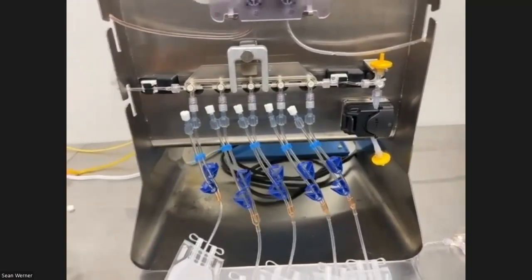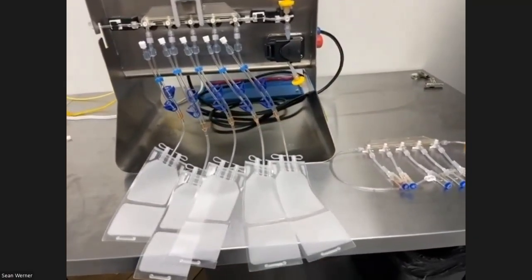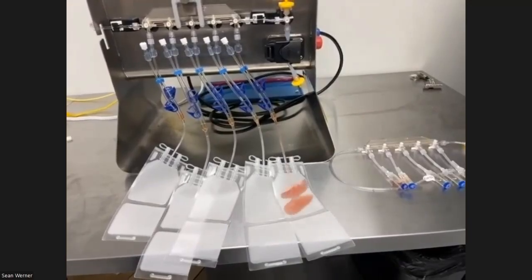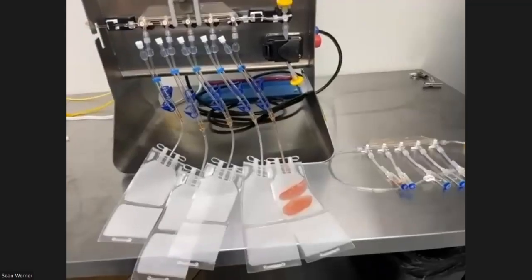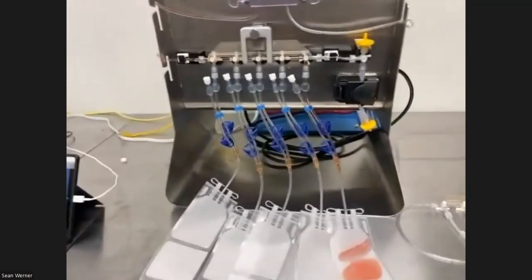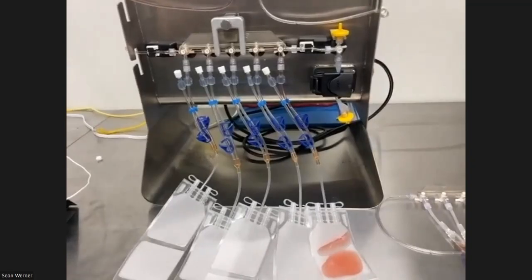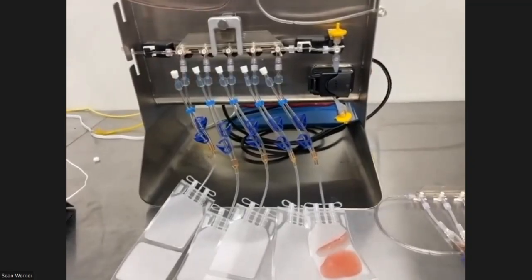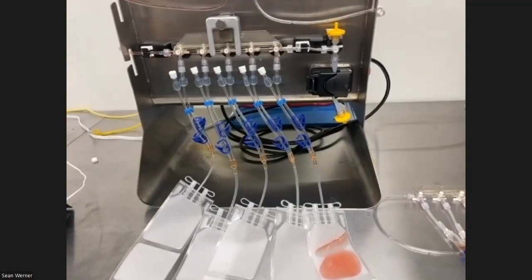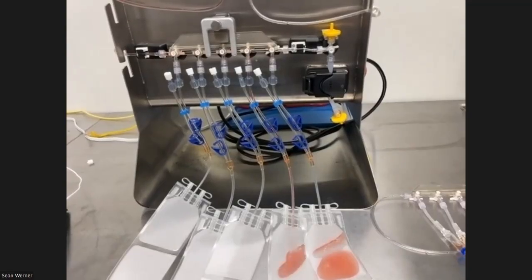On the software, if you notice that there's a leak in the manifold or a leak in the weld after you've attached a new manifold, is there an emergency stop? An abort mission? Yes, there's an emergency stop on the right. That's just a hard power kill. And then the software has a stop and reset button on it as well. So you can stop it and make adjustments using both methods. The e-stop will kill the whole thing and that's it on the protocol. The other will give you an option to start and stop if you can fix it. Okay, and the start stop on the program is more of a pause? Yeah, that's what I meant. Yep. Okay. Just making sure it would resume if something should happen.